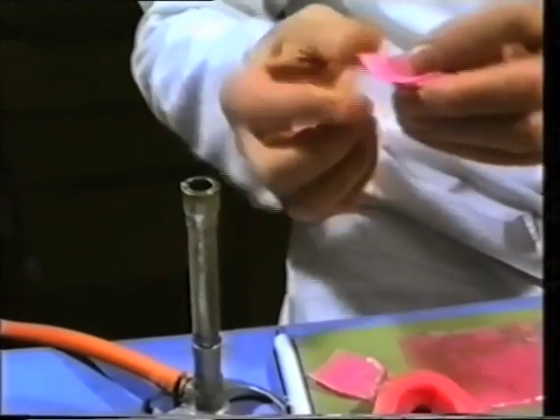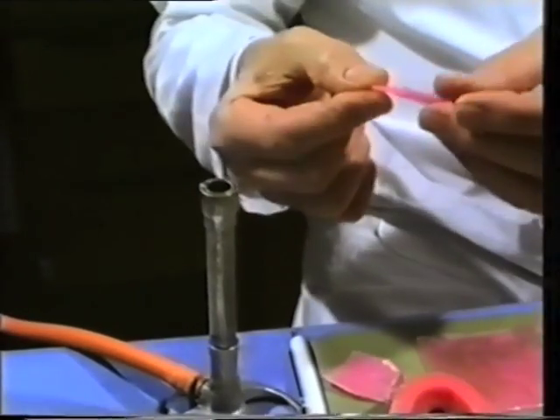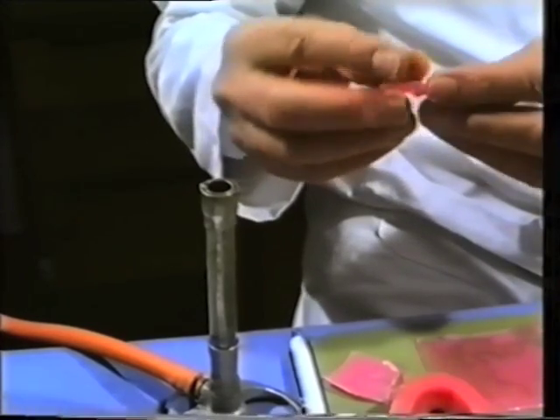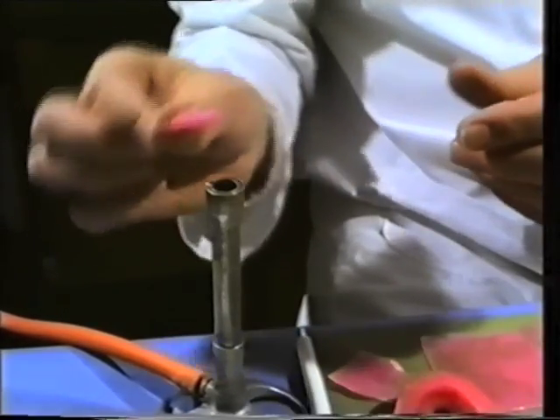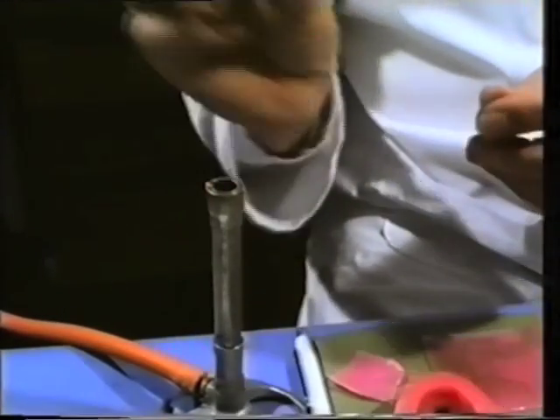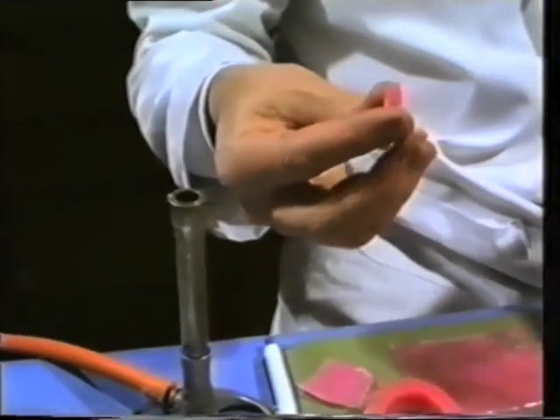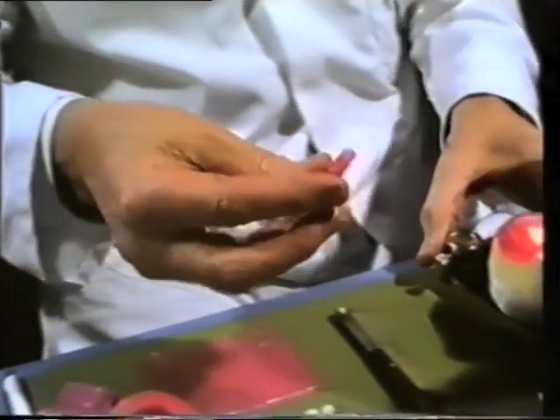Once the opposite side of the denture has been set up, the lower occlusal rim is removed and replaced with a base plate and wire strengthener. A small roll of wax is then softened, positioned and luted into place.